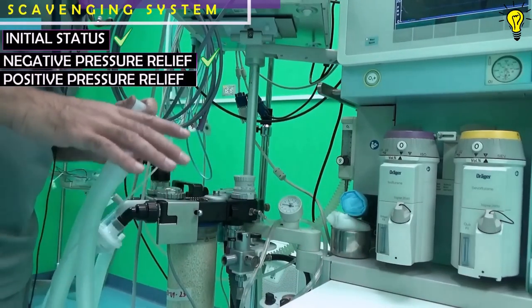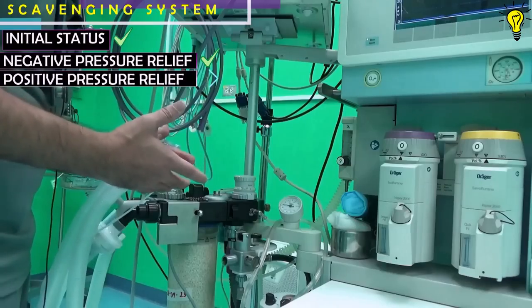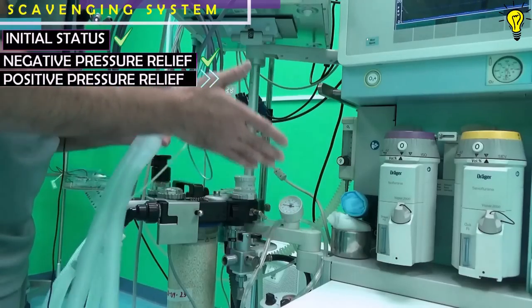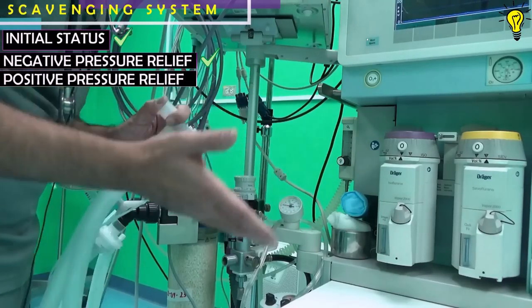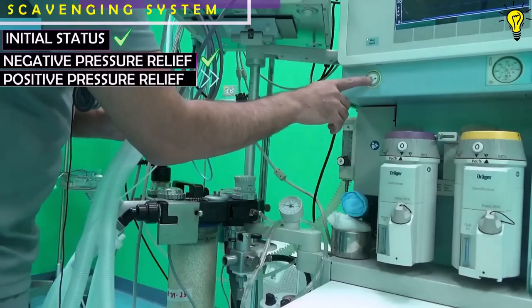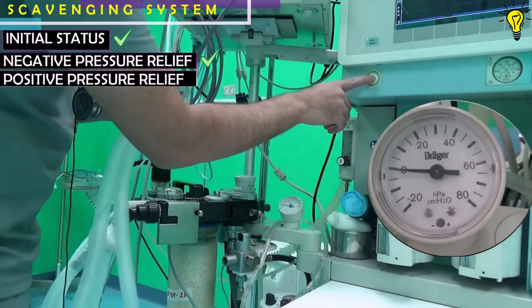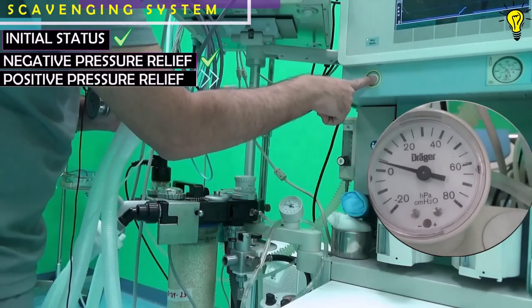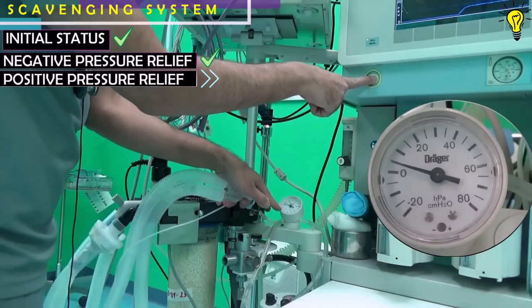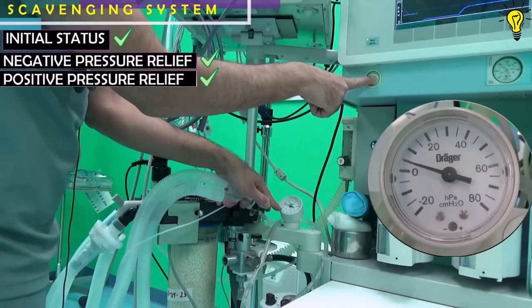Next, check the positive pressure relief mechanism of the scavenging system. In cases of obstruction, you don't want positive pressure transmitted to the patient. Keep the Y piece occluded, turn on the oxygen flush, and make sure the pressure gauge does not read beyond 10 centimeters of water pressure.